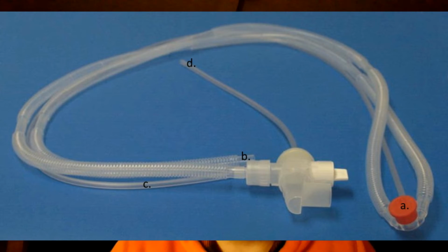C is the pressure line, which is going to regulate your peak pressure and monitor those things. And then D is going to be the expiratory drive line, which is going to help to monitor and regulate your PEEP. You'll notice that your drive line, your expiratory drive line, and your peak pressure line look very similar. What's going to separate those two, of course, is that big expiratory valve that you see in the diagram.